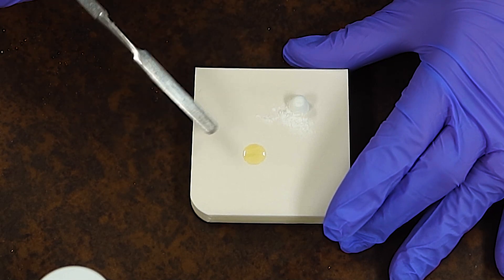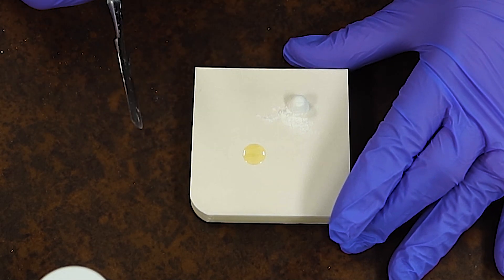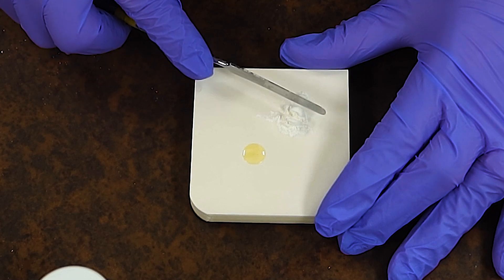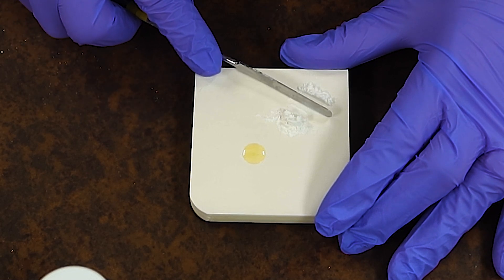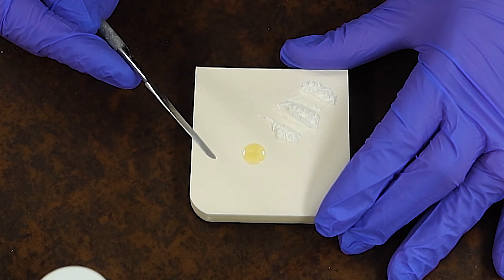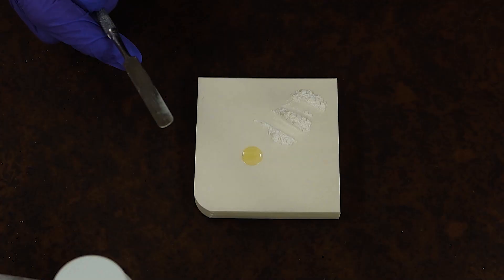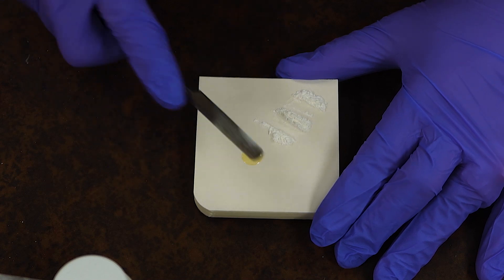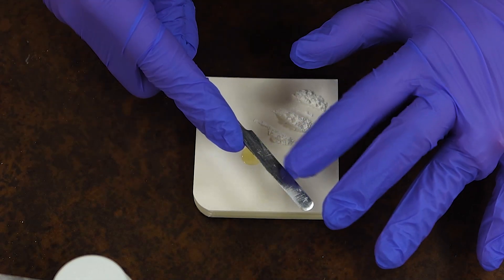Now the difference that comes from mixing a base versus the liner we have in our other video is that liners are going to be a fairly simple, easy mix, whereas this one might take a little bit more force and a little bit more know-how about the consistency of this material so we can get the right mix. With this mix, the main thing is using the whole length of the spatula to smooth out your material a little easier.